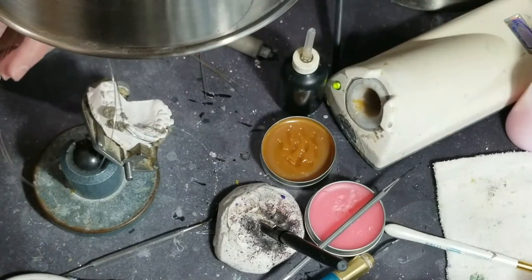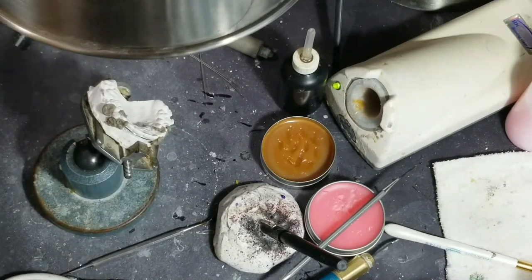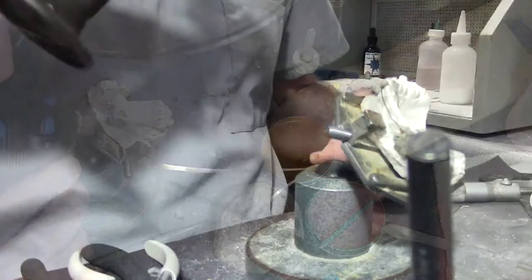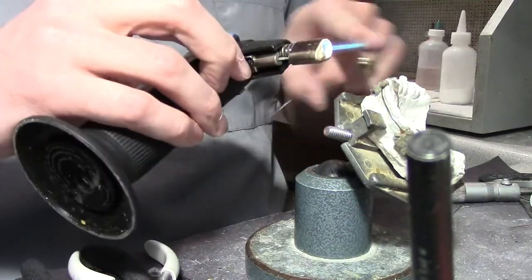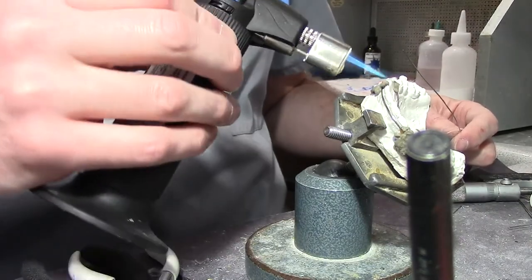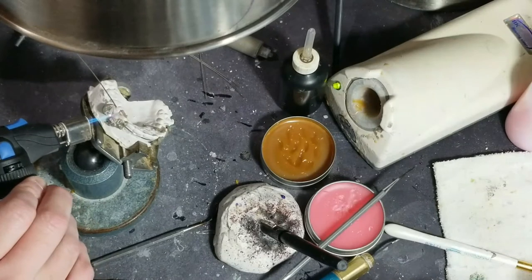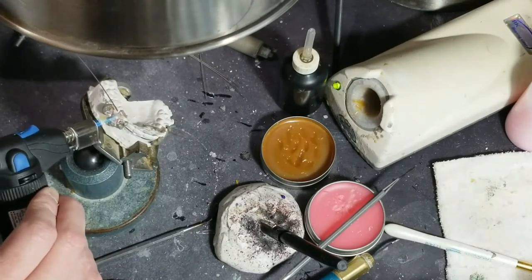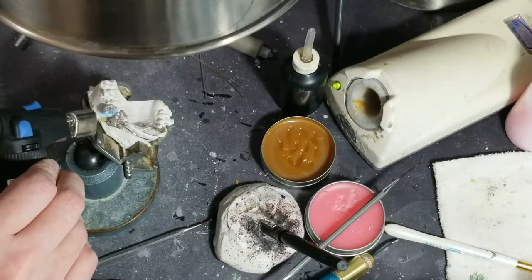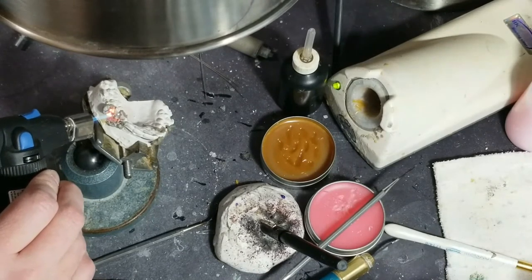Here's my solder and I just got used to holding it like this. Clean off the tarnish. All right, let's see if I can do this. So I'm going to angle my flame up, away from the model — not straight at it, because then it's going to try to get underneath my heat shield. So I'm going to point it up so I don't get any reflection onto my wire work. As it's pointing up I'm going to solder, keep moving it around until that flux becomes clear. I'll add a little bit of solder here, add a little ball at the top, and then paint it down — I call this painting, or feathering it down. Hopefully that little ball will relax and... there we go, it's flowing down. We're good.